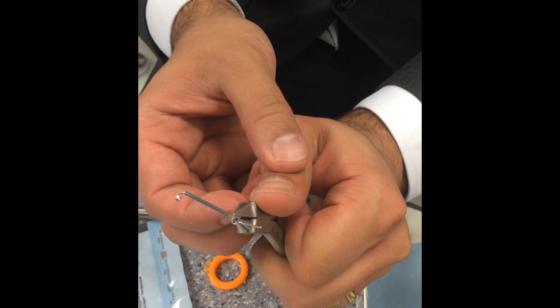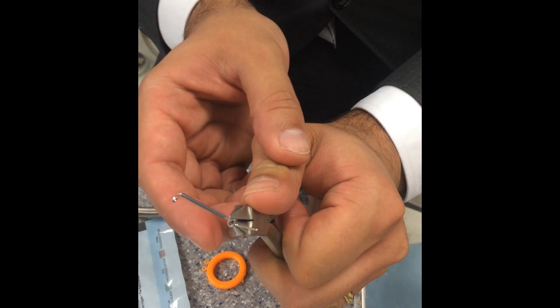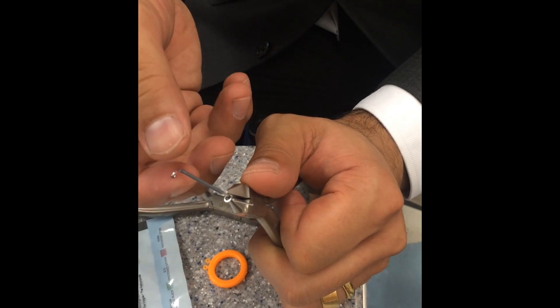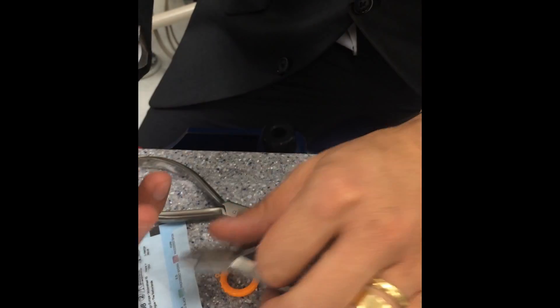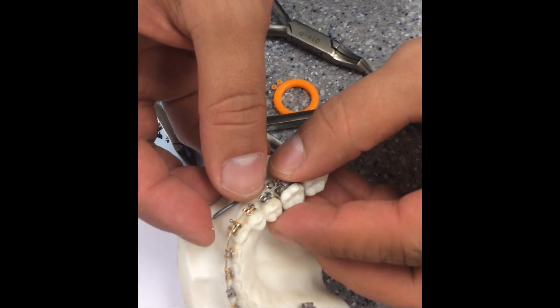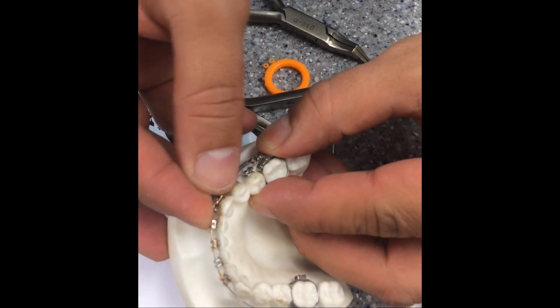So the activation is here — you hold the helix, grab that part. Normally, to give you 80 grams, it's probably to the deepness of the vestibule. I always suggest that people should use one of those dynamometers to measure the force.